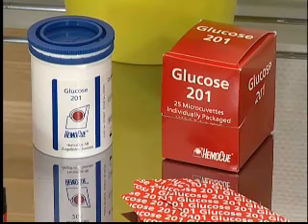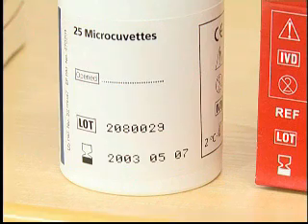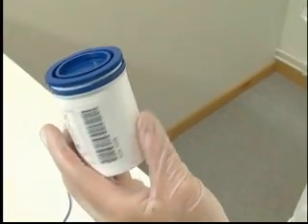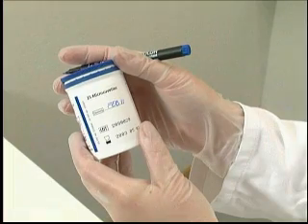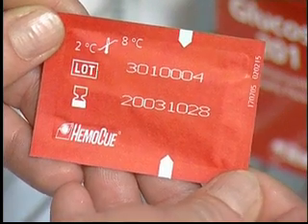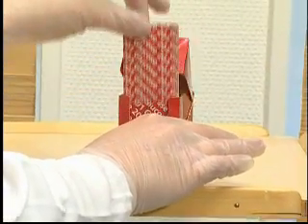The micro-cuvettes are available in vials or individual packages. Once the seal is broken, the micro-cuvettes are stable for 30 days when stored in a refrigerator or 3 days at room temperature. Always keep the vial properly closed, and it is recommended that the date of opening be written on the vial. Each individually packaged micro-cuvette is stable until the expiry date when stored in a refrigerator, since only one package is opened at a time. The individually packaged micro-cuvettes can also be stored for 3 days at room temperature.